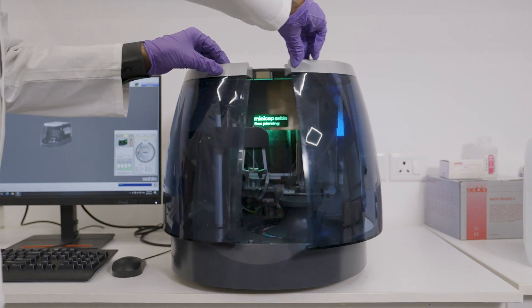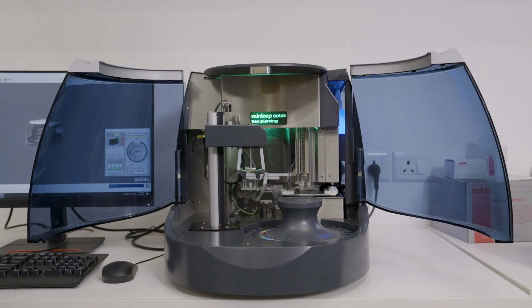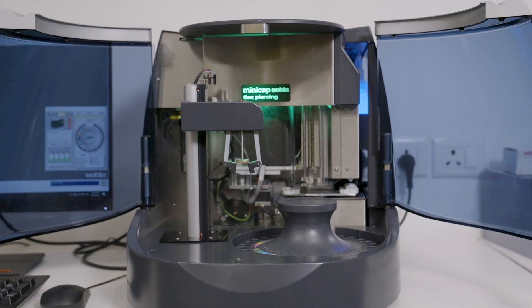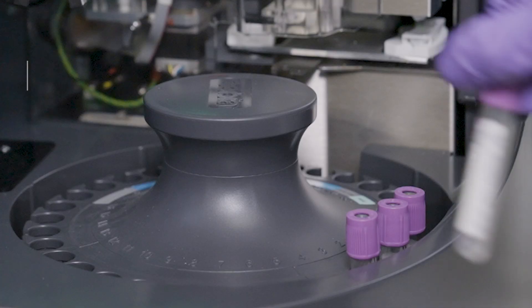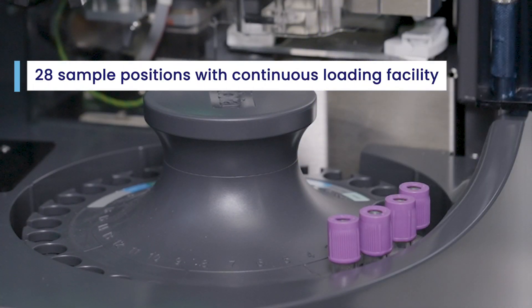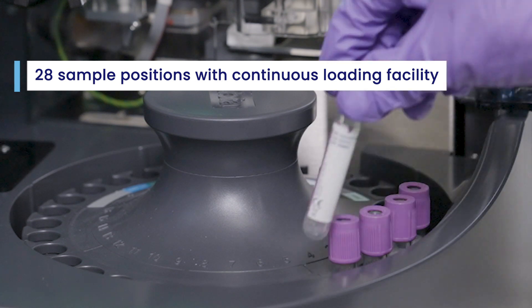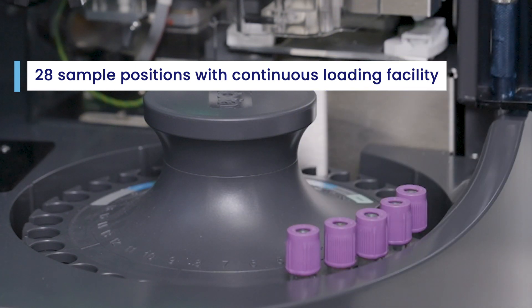The instrument is equipped with two parallel capillaries enabling simultaneous analysis and reasonable throughput. It has easy to access carousel with 28 sample positions with continuous loading facility.